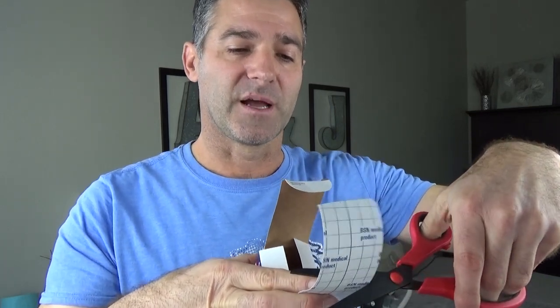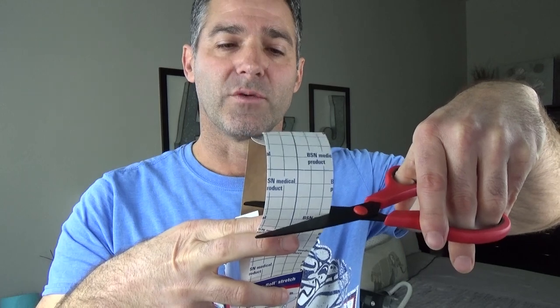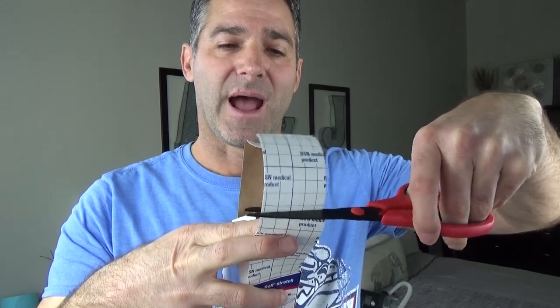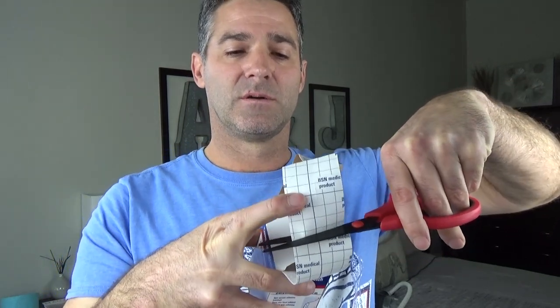I'm going to show you the wrong thing to do first. You want to make sure you cover up the corners of your mouth and then about a centimeter past. Don't run with scissors — that's my public announcement. So I've cut the tape. The first few nights I did it, everything was fine. I didn't have any problems. I just took this tape, pursed my lips together, sealed it up, and slept like a champ.